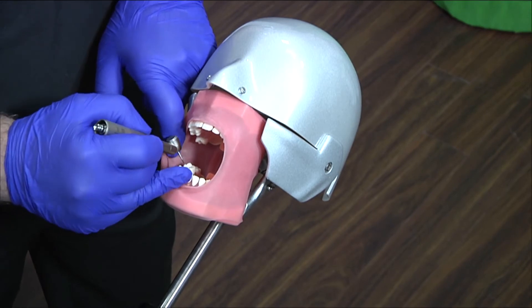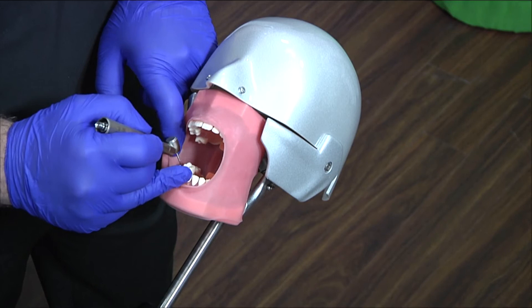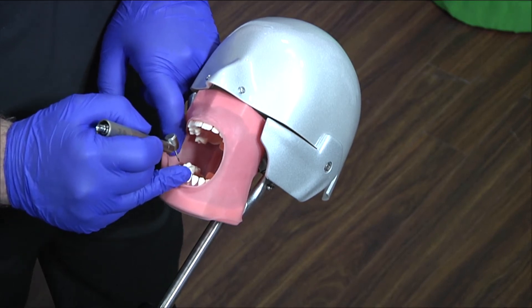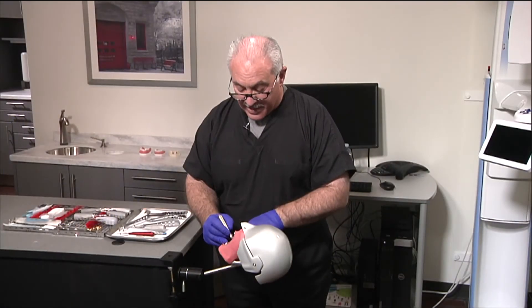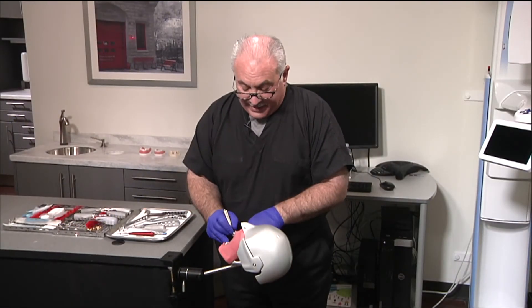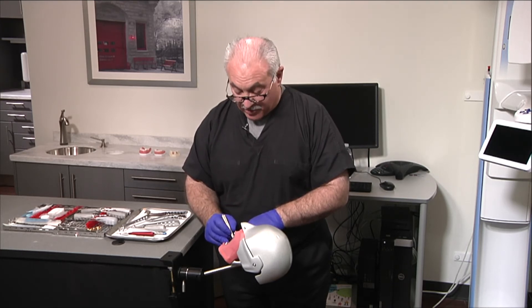So if you're more comfortable with your high-speed dental handpiece, this is what you use. Most surgeons, however, would be using a straight handpiece with either nitrogen power or electric. It's just — we're creatures of our training. It's what we've become accustomed to.